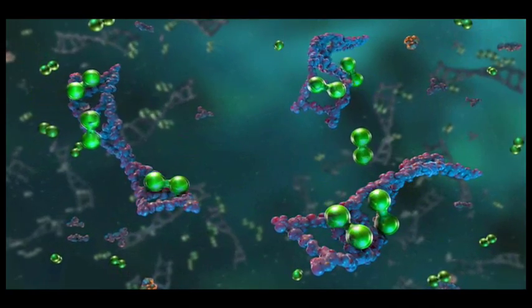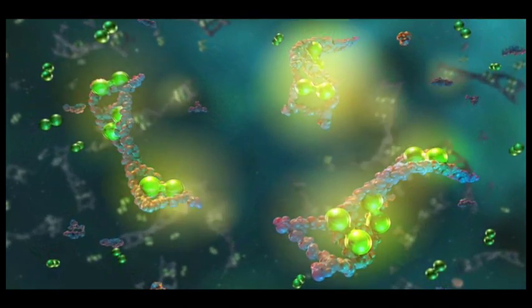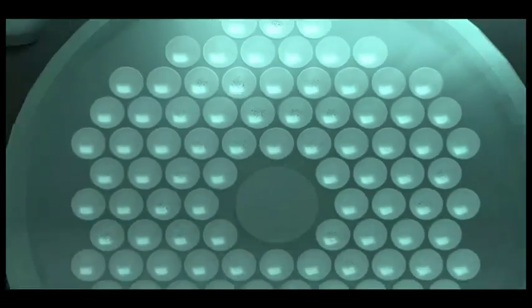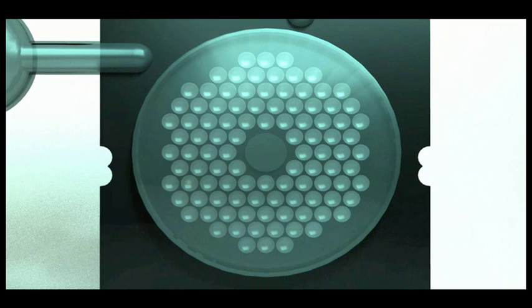A fluorescent double-stranded DNA binding dye is used to monitor each reaction. The second stage primers in each well are designed to detect one specific target.